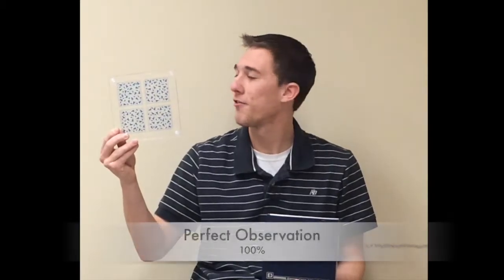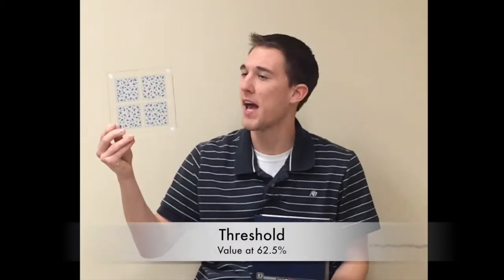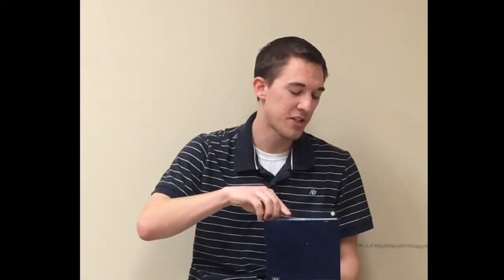To determine the threshold, you will look at the percentage obtained that is halfway between the guessing rate and perfect observation, which is 100%. So for this test, our threshold will be at 62.5%, which is halfway between the guessing rate of 25% and perfect observation at 100%.